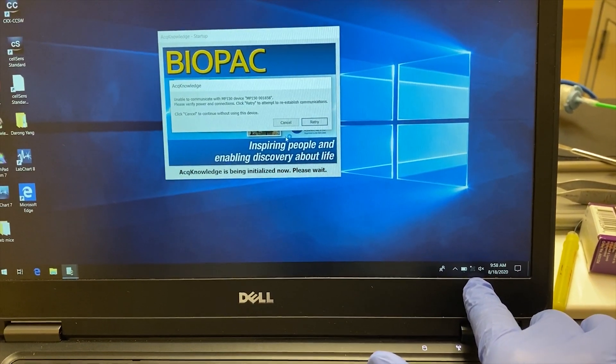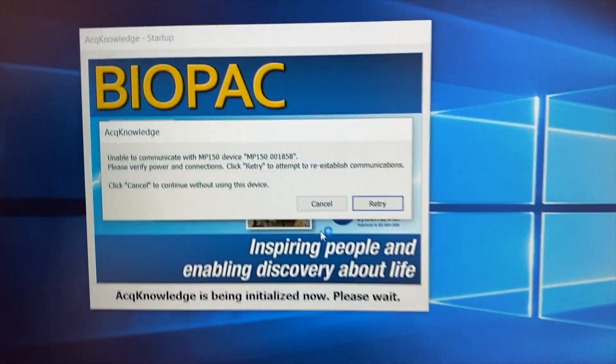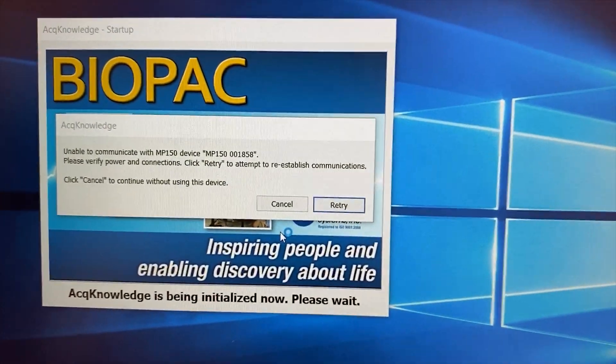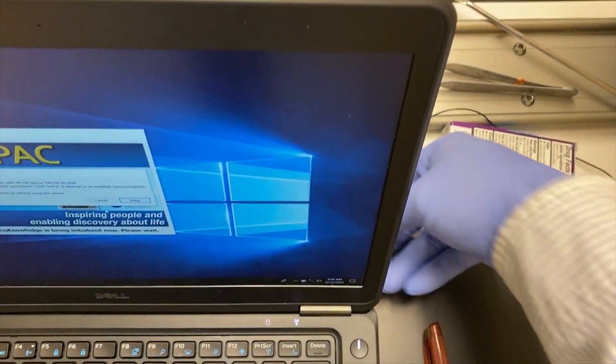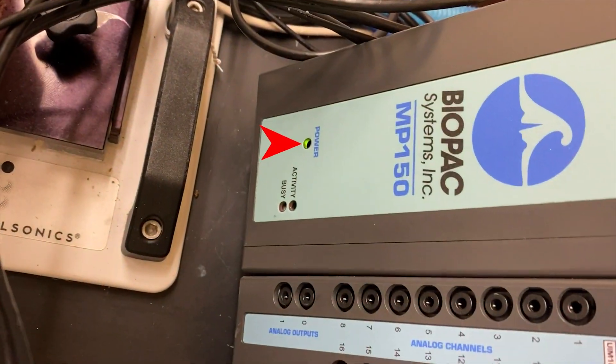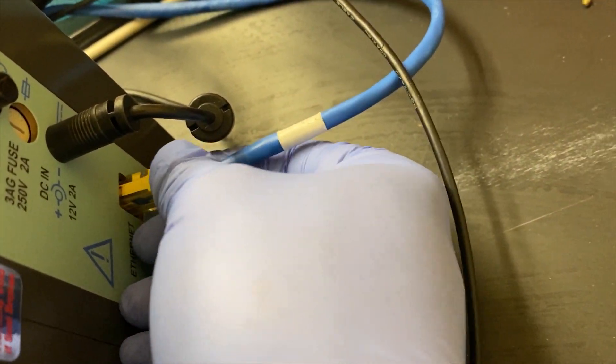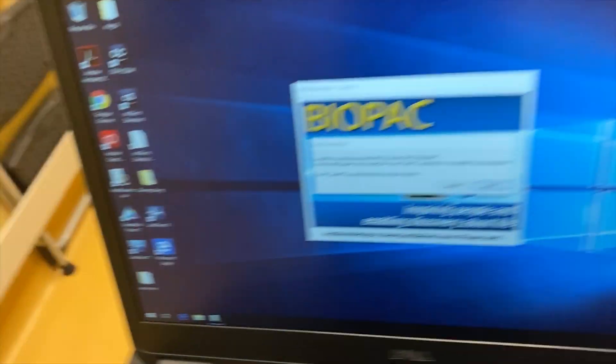And you can see in here, there is no internet connected, and sometimes you will have this, so they didn't find the device. Double check the network cable, and sometimes you need to double check the power, and you see, it's not connected.